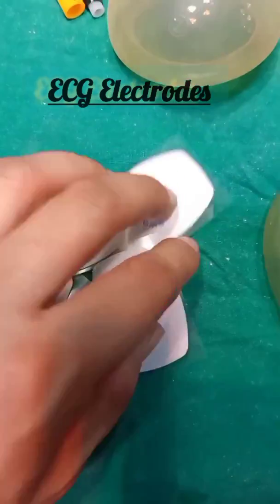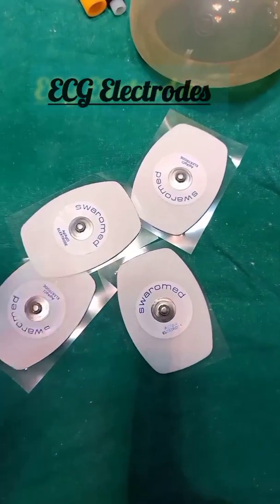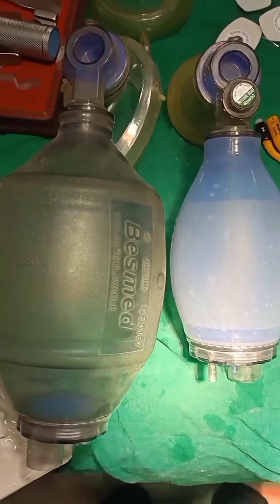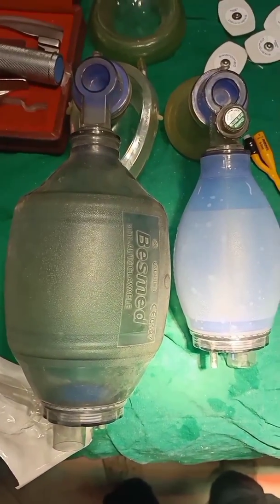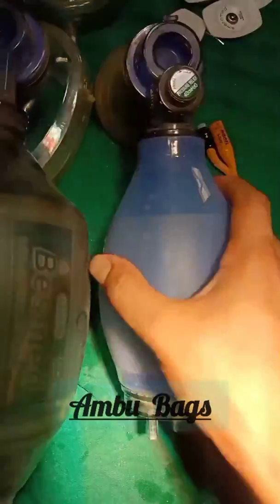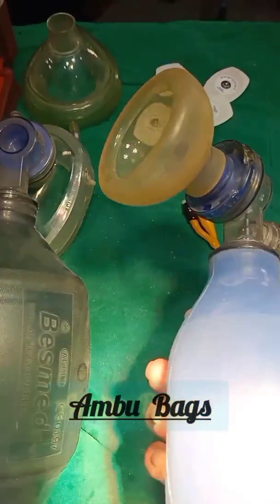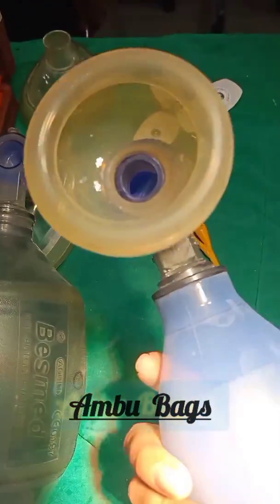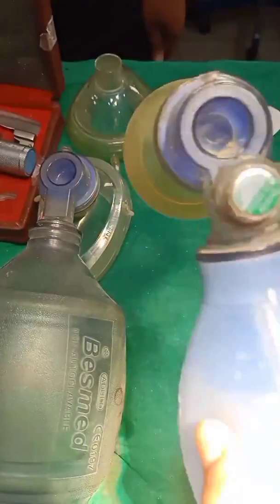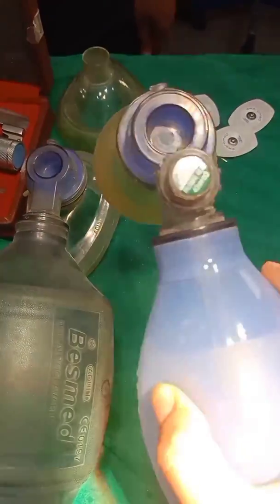These are basically ECG electrodes. You will use them while doing an ECG, placing them on the chest of the patient. Now you are seeing the ambu bags. You will give artificial respiration with these in cases of CPR.